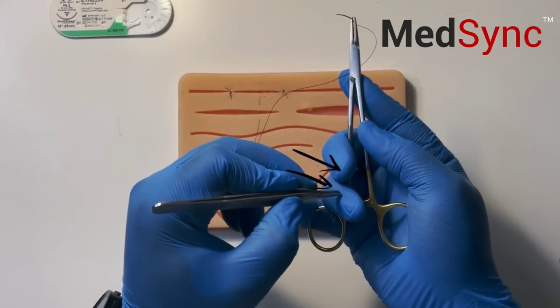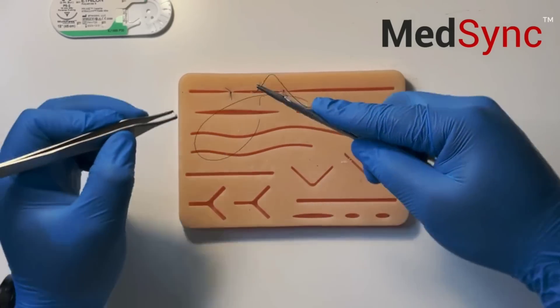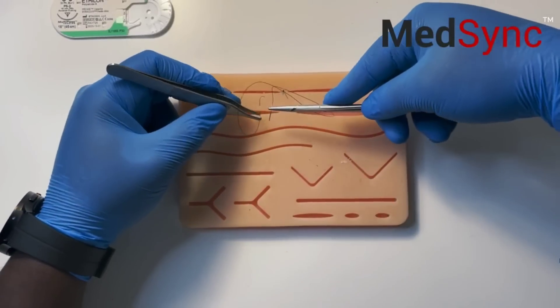Fingers are along the shaft. Index finger provides stability. I can get the angle to get the curvature.